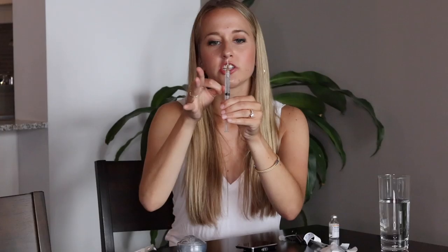Now is the time to get rid of your air bubbles. I find it helps to pull the plunger back a little bit more, and then you can see the big bubble. I just flick it with my fingers — sometimes tapping works — to get all the air to the very top of the syringe. When I push on the syringe I want just air to come out first, not insulin, because I don't want to waste it. In this syringe I now have about 160 units, and I'm ready to fill my cartridge.